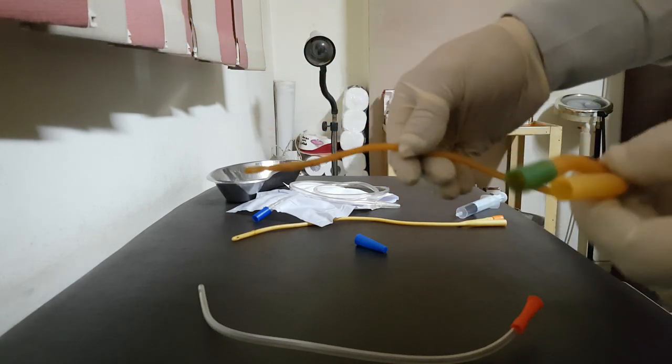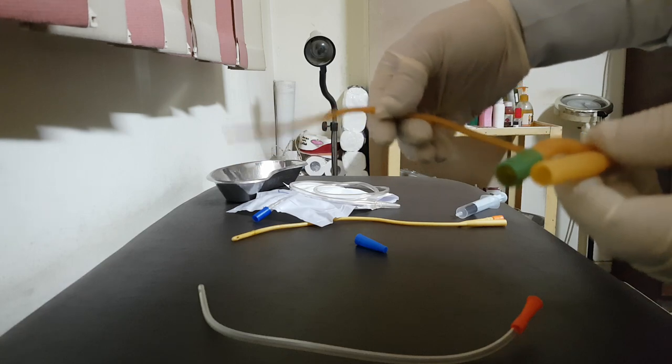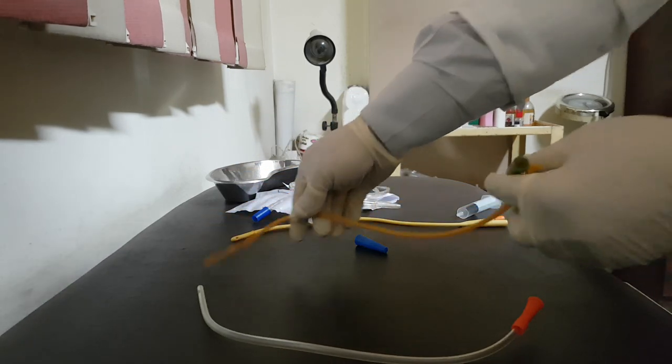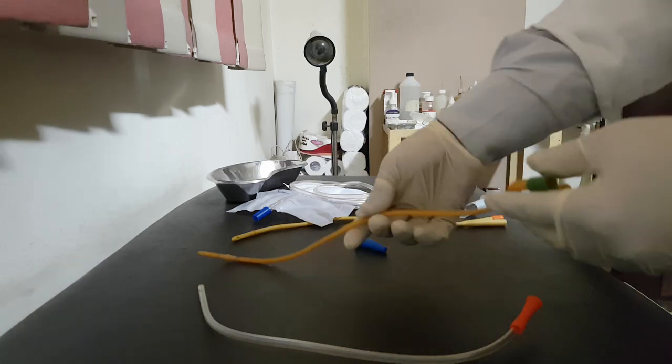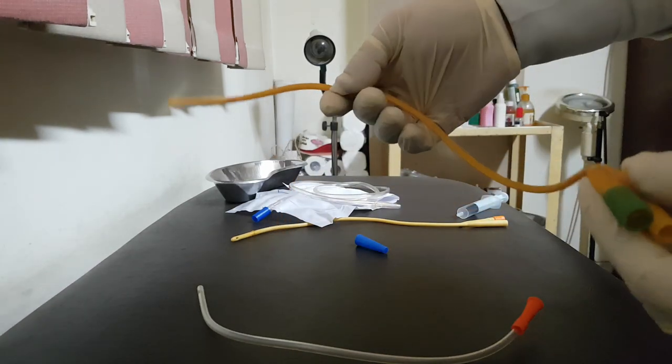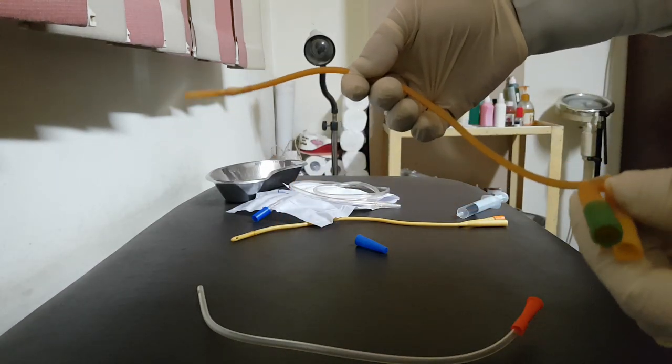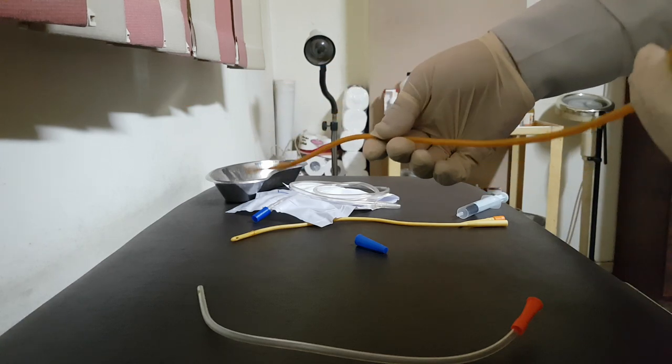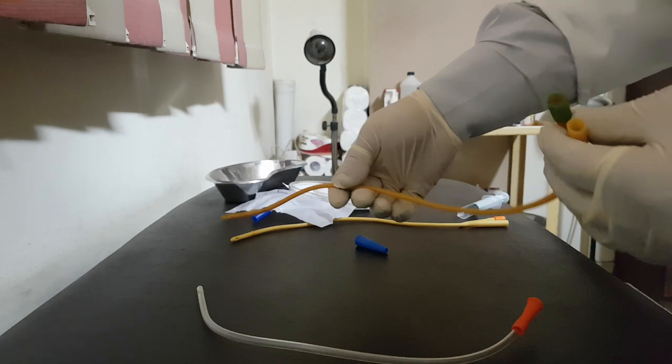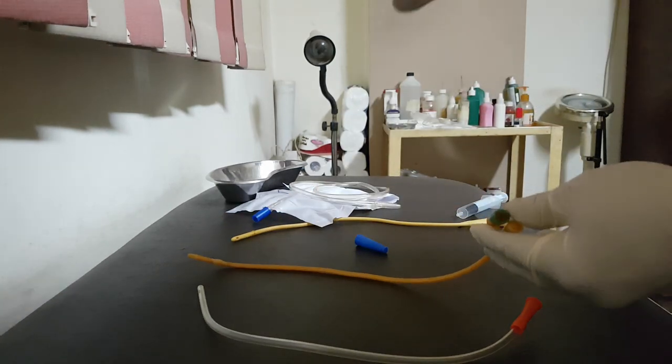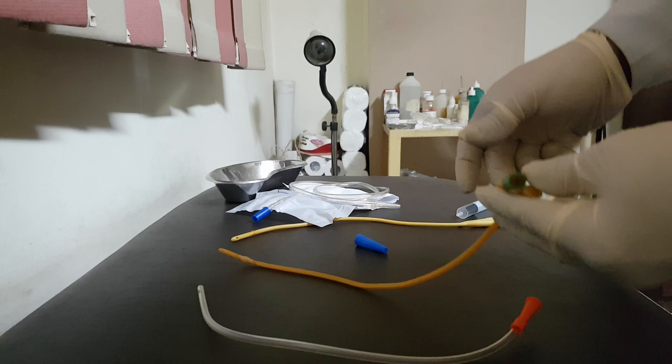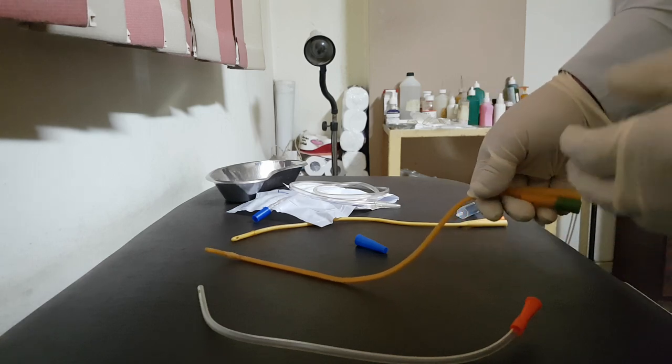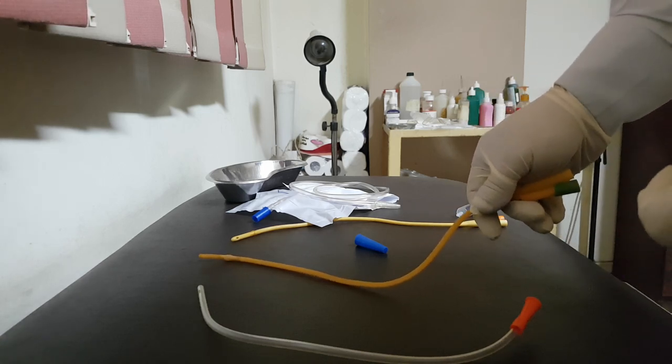I have different sizes: 10, 12, 14, 16, 18, and so on, the same as Nelaton. What is suitable for women, adult women? 10 and 12 is more commonly used and suitable as regards to the urethra of the woman. We know that woman's urethra is shorter than male urethra, so usually the catheter length is shorter also.